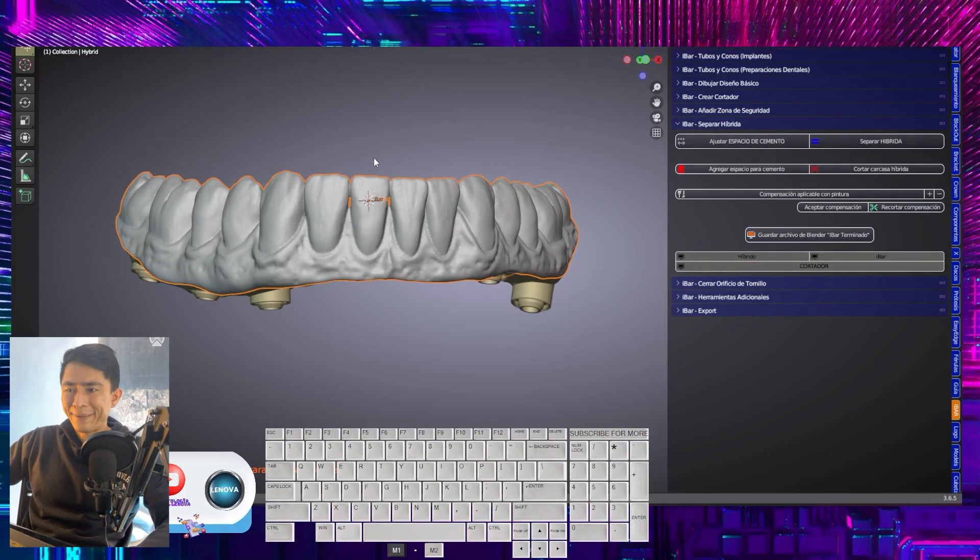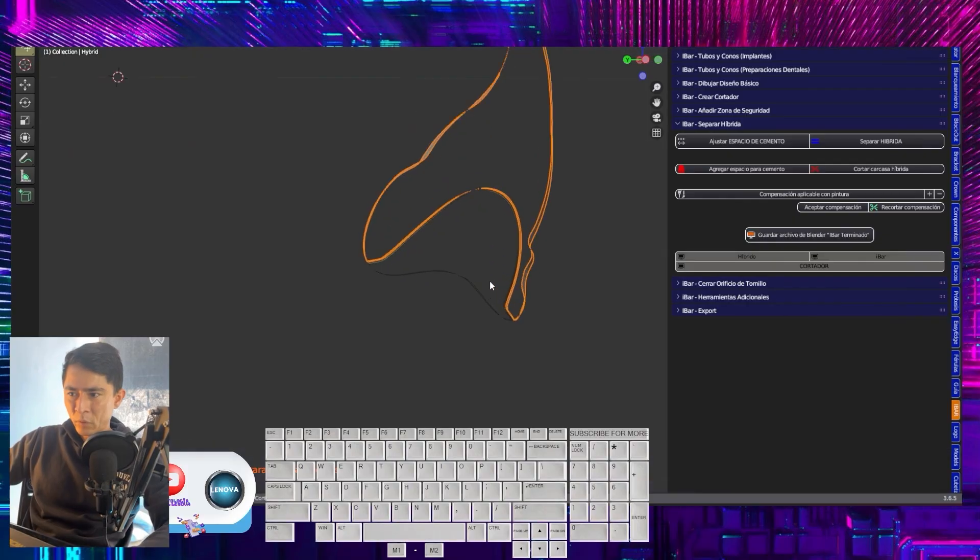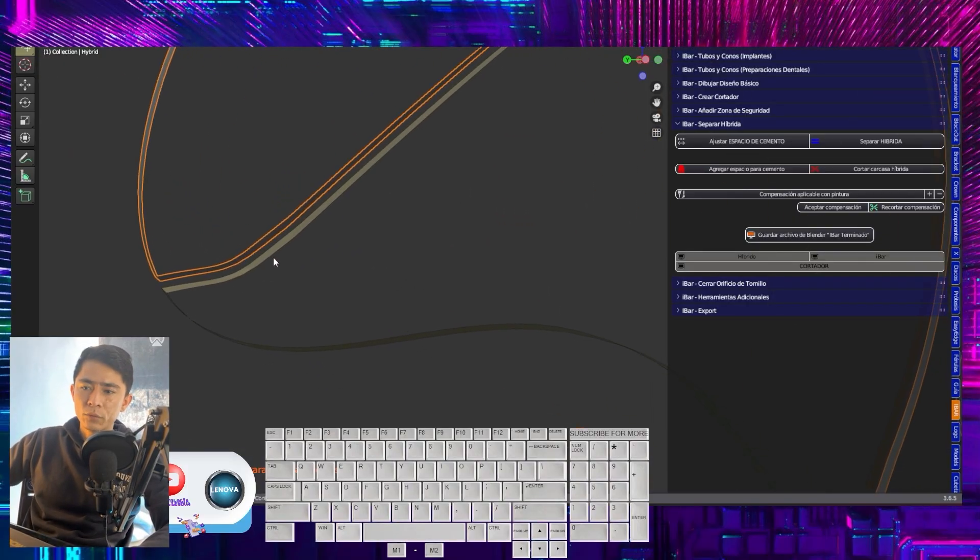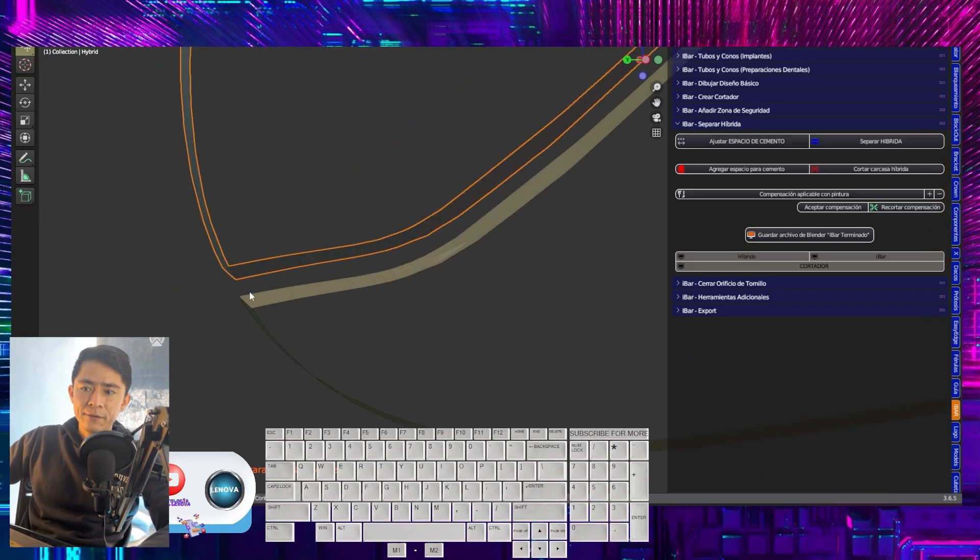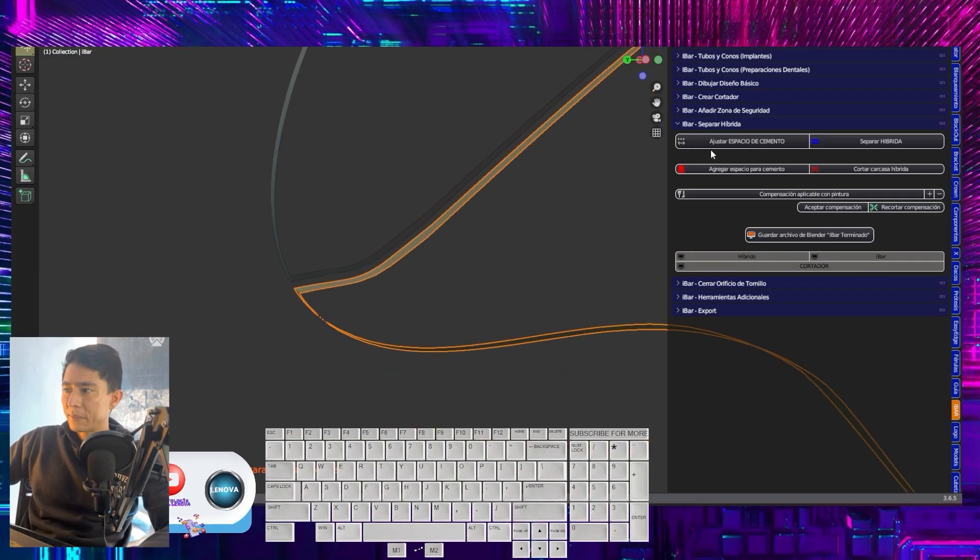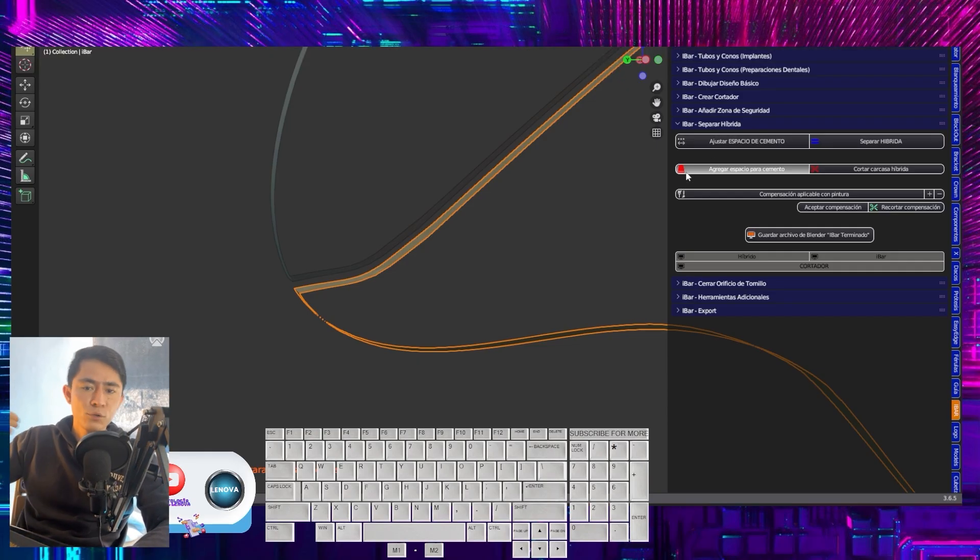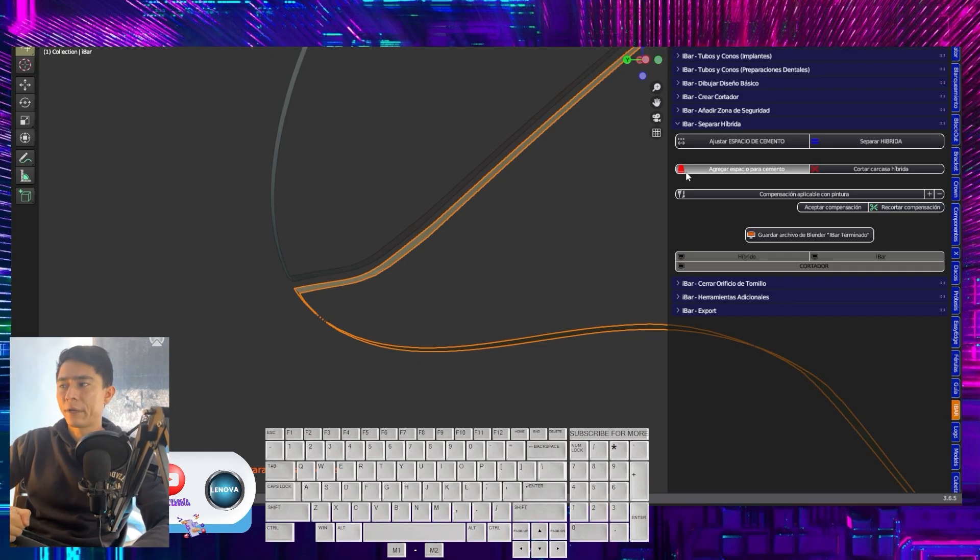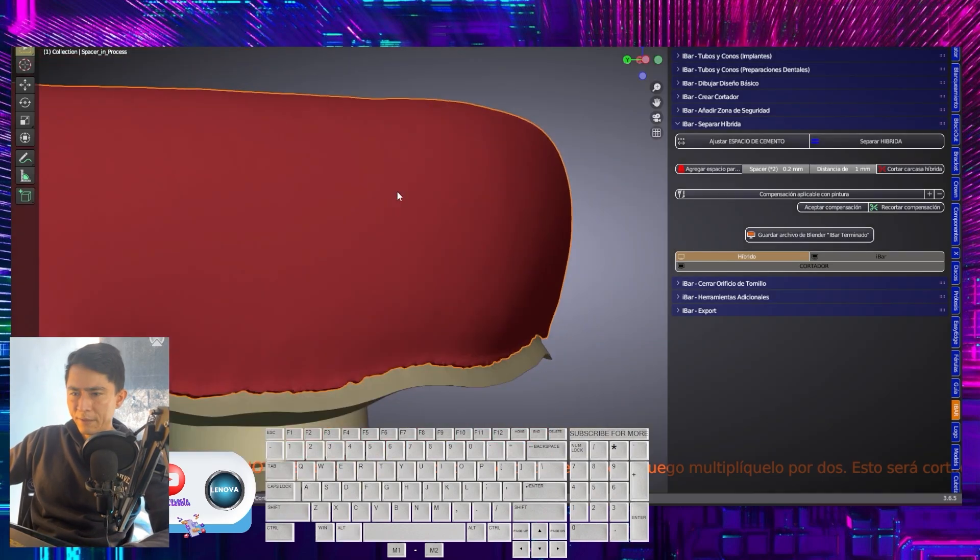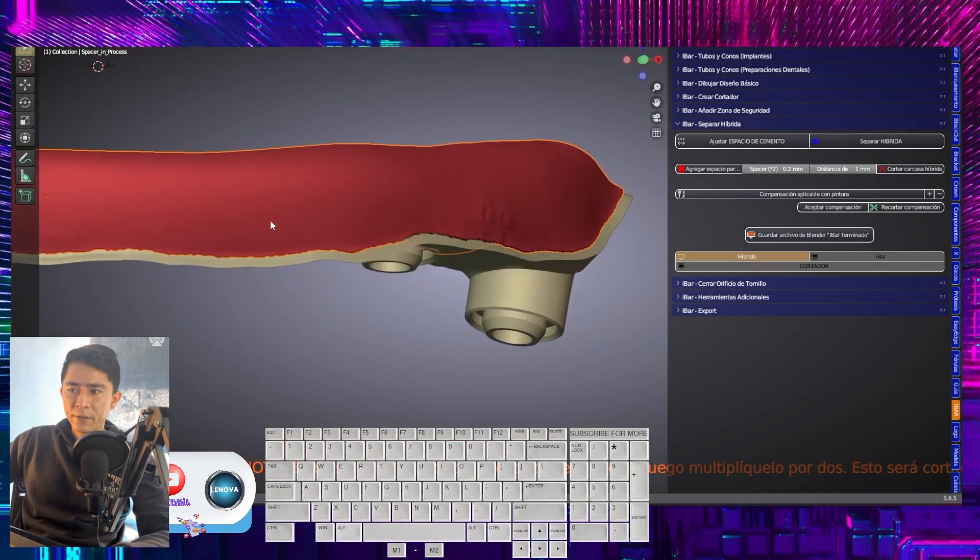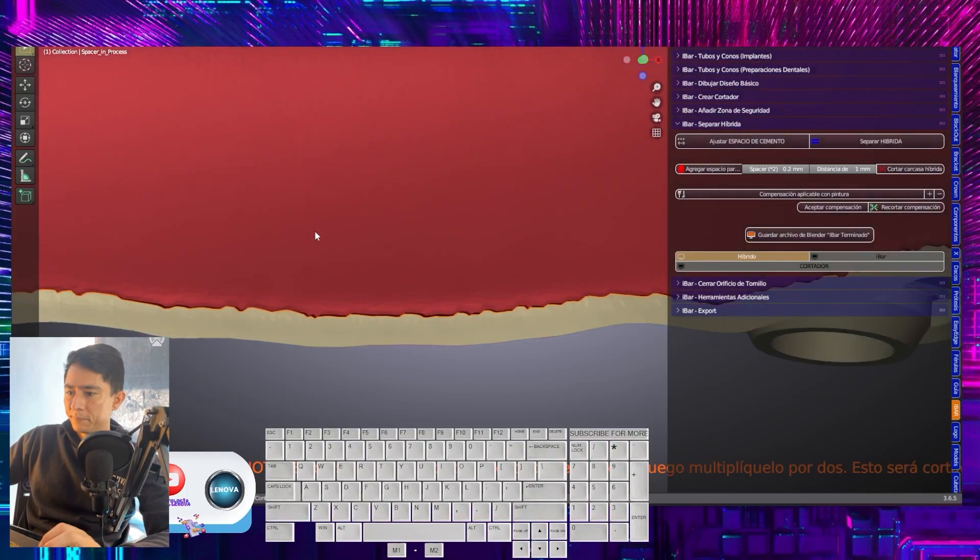And now what we are going to do is correct a small detail. Well, it's not correcting it, it's like perfecting it. Look how this part fits. That area is continuous. The bar is exposed here. Look at what I am going to do. I am going to select the bar and choose to add a spacer. I do this so I don't have to go through the block module. This red sheet will come up. It's the same one, only I am going to work on it at the level. This one goes transversely.